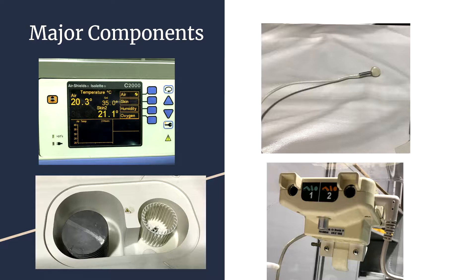On the top right is the skin temperature sensor. You can connect it to the skin of an infant to monitor skin temperature. To test it, you can simply hold it in your hand and see the temperature. Human skin temperature is generally around 34 degrees Celsius, a few degrees below body temperature.